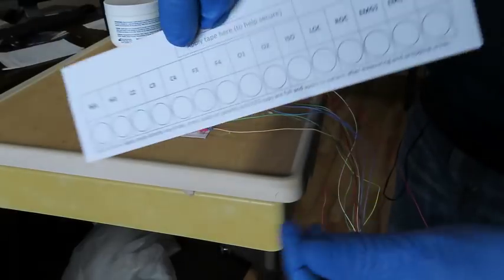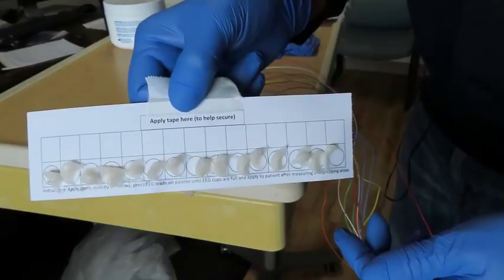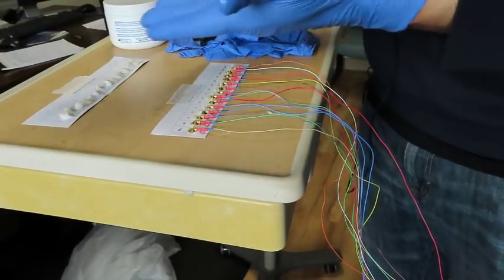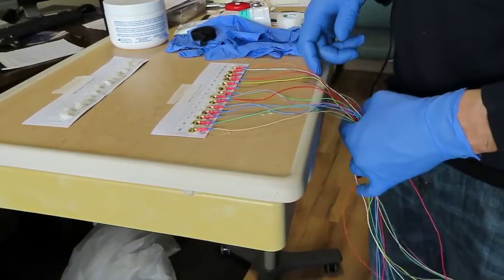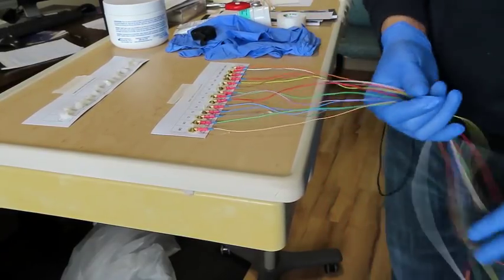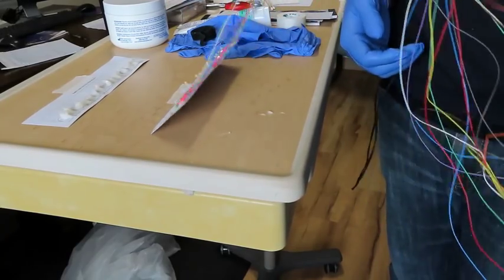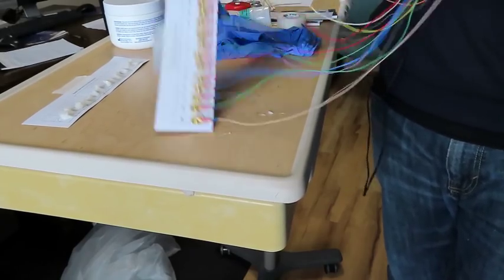Okay, and again, if you turn this around, that's that part. Turn that around, that's this part. And again, that took probably about maybe 2, 3, 4 minutes around there. So, and that's pretty much it for these pallets. It's very simple. Look, you can take it, see how they all pull up. Okay, take it off. All right, so there you go.